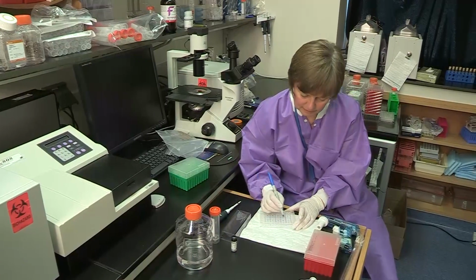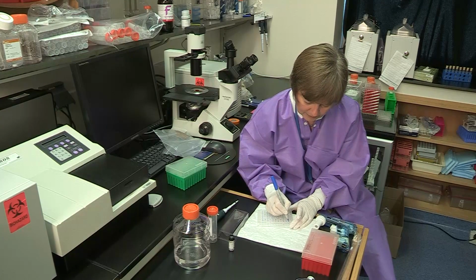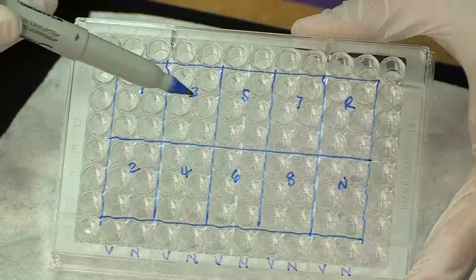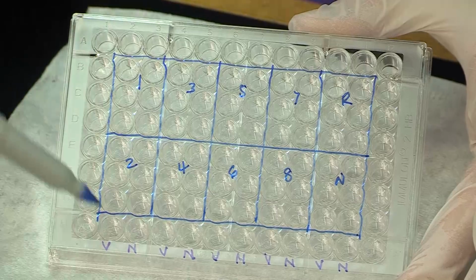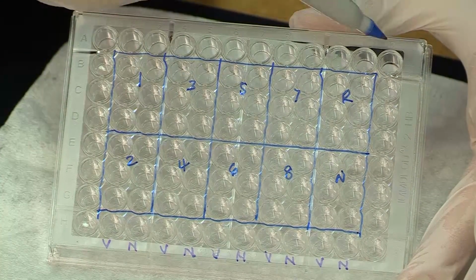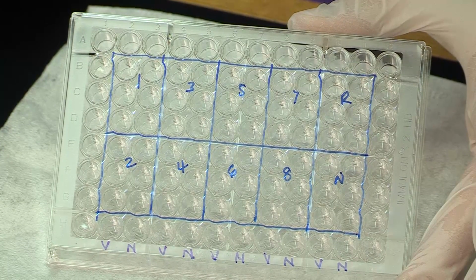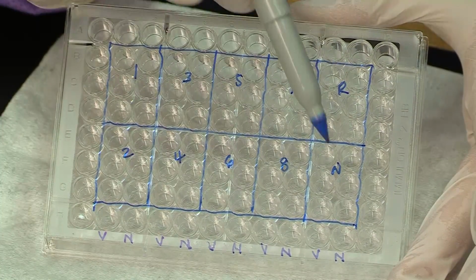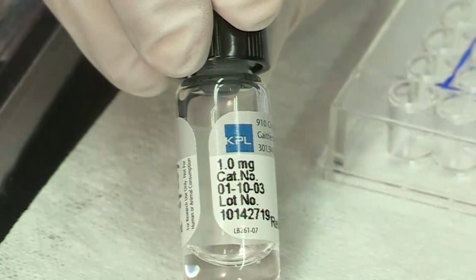To begin the IgM ELISA, mark the locations of the sample on the plates using a Sharpie as shown here. All samples and controls are tested in triplicate on both viral and normal antigens. Outside wells are typically not used, to avoid inconsistencies that tend to occur in these wells. A maximum of 8 test specimens can be tested on a plate. A positive and a negative control should be included on the plate.